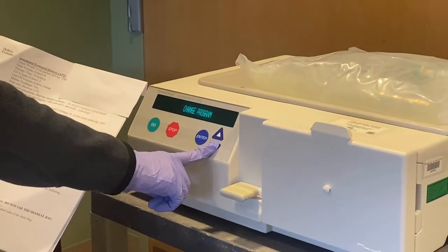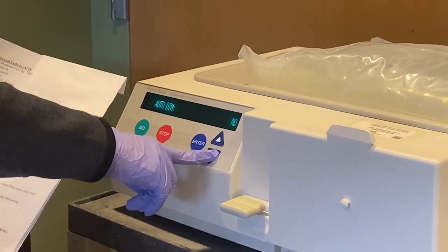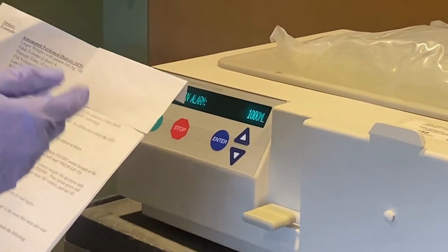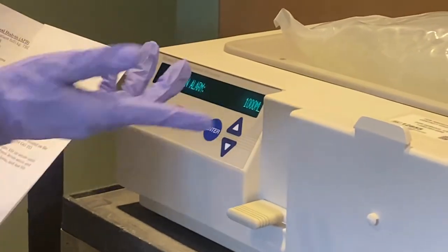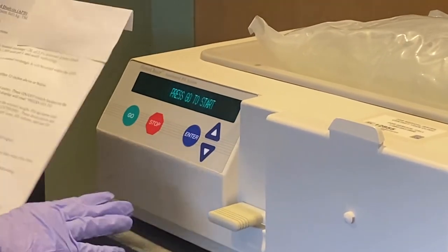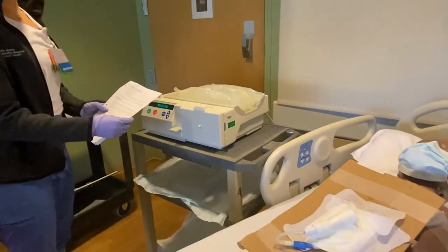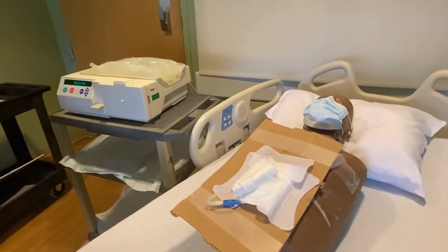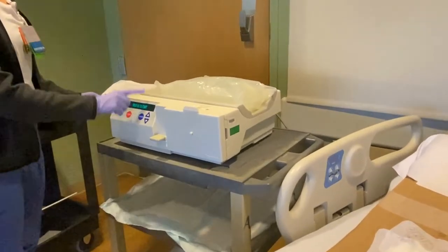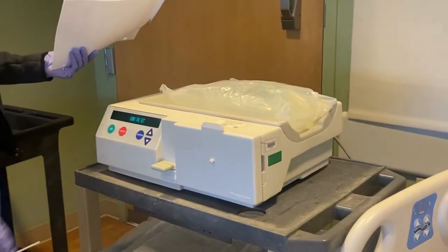Click down to make adjustments — this is where we'll find our initial drain alarm. If we knew the patient previously had a midday exchange of one liter, we would set this alarm to 1000 milliliters, or one liter. Click stop. At this point we have the therapy set up and the initial alarm in place. Click go to start — the machine will alarm and give us instructions for everything we need to do next, telling us to load the set.